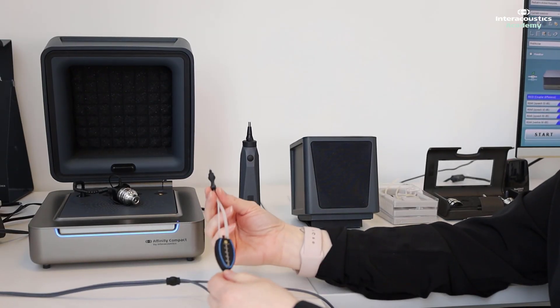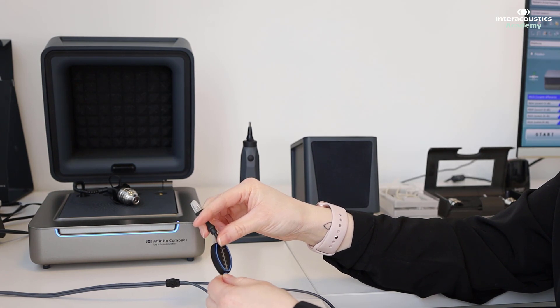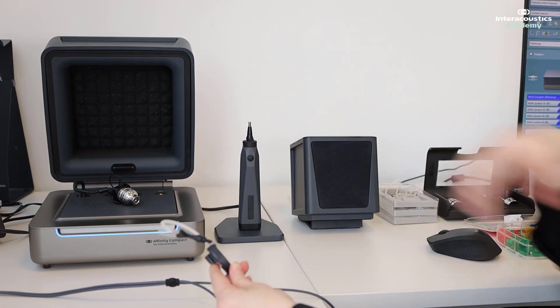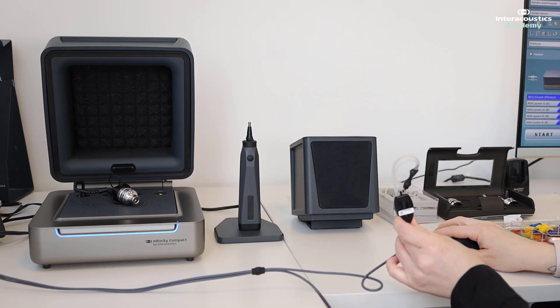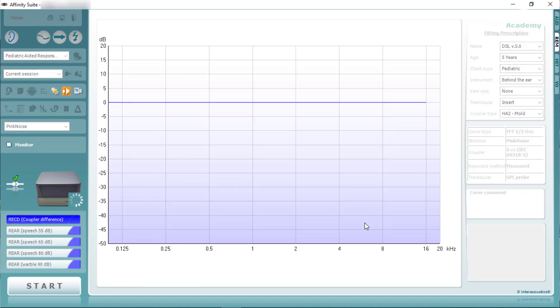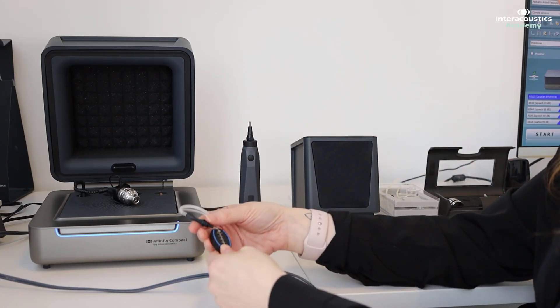This is the SPL60 probe. In order to calibrate it, you just need to place this tip in between the two markers so that it's held against the microphone, and then you hold that in front of the speaker whilst the calibration sound is being played. That's the calibration complete.